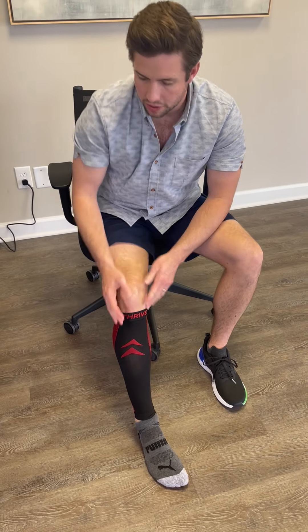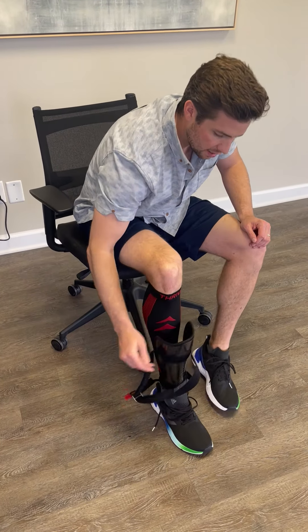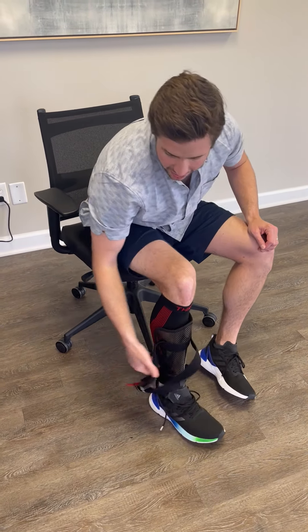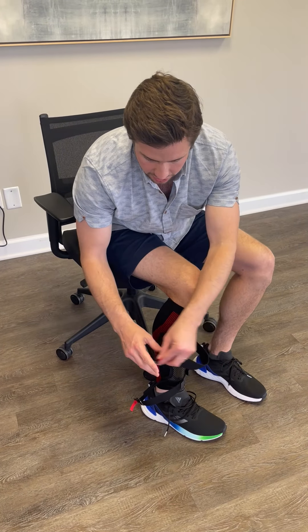If you don't want to mess with knee-high socks, you can wear the socks that you like and just use your calf sleeve when you're using your AFO. Here I have my F3 AFO with the magnetic straps and the strap pads as well.